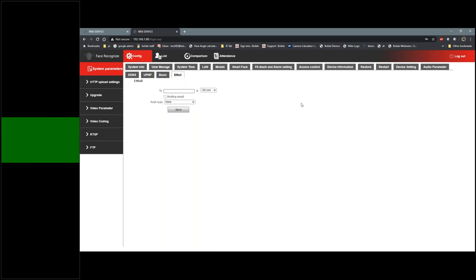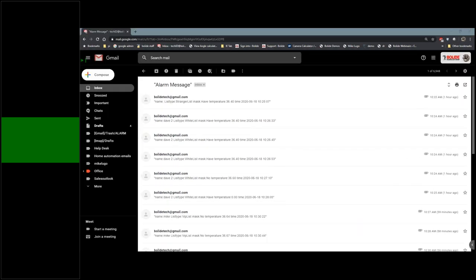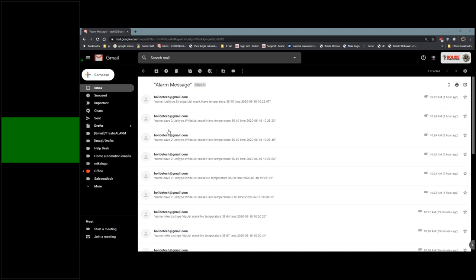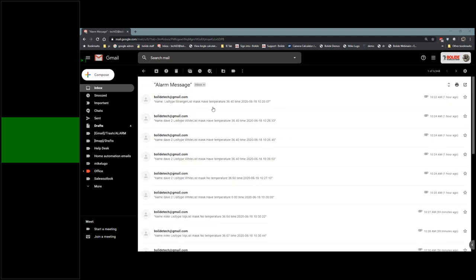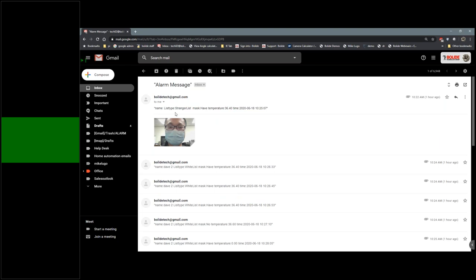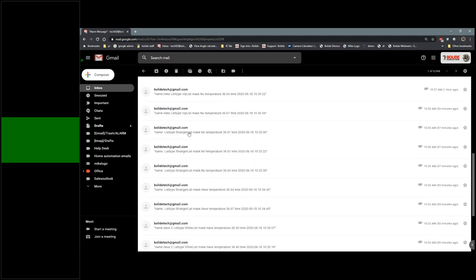Finally in this section: email — this is a very, very important option. We want to cover instant notification. What happens if somebody comes in with a high temperature? Let me go to my email and show you. This is an email notification — one of many. You're going to get the name, the type, whether they're on the white list, if they're wearing a mask, the temperature reading, the time, and the date.